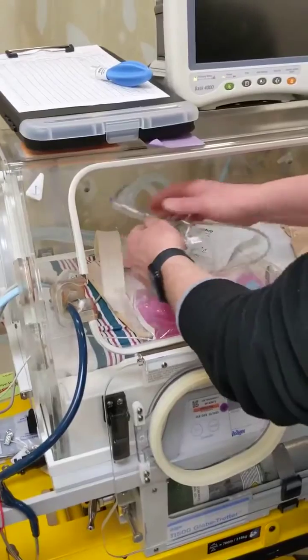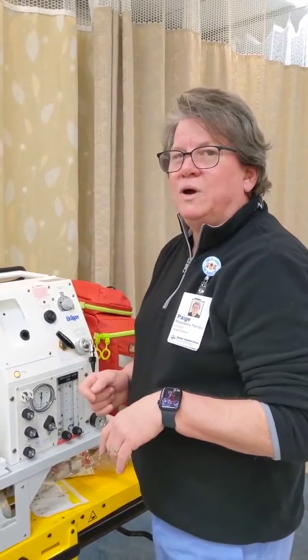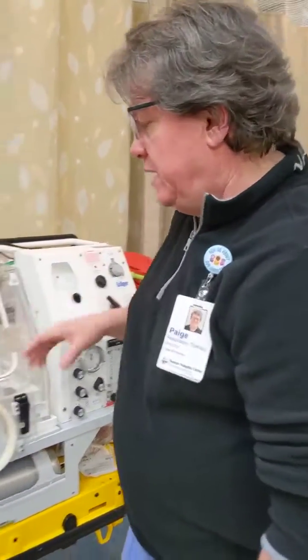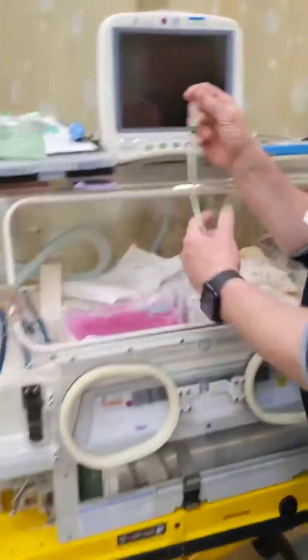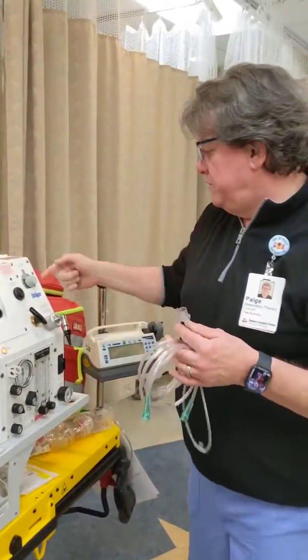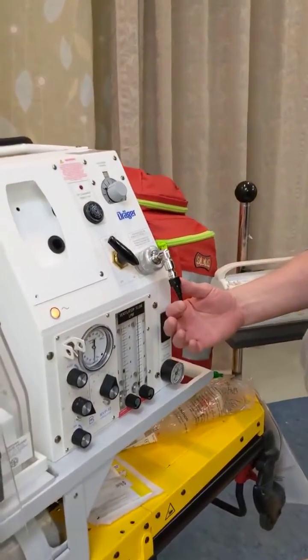All right. The last component I want to show you is how to apply high flow or a nasal cannula in the course of transport. Again, we use this device right here. I'm going to use that same RAM cannula we just talked about to deliver CPAP to our patient, and I'm going to need an oxygen line. Coming off the ventilator itself right here is a flow meter.